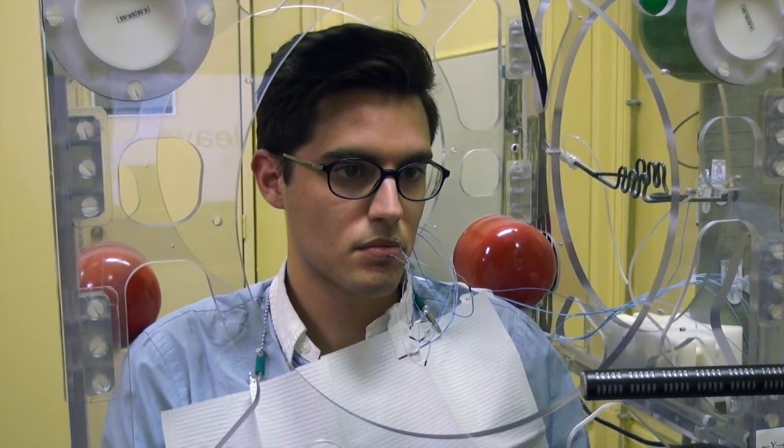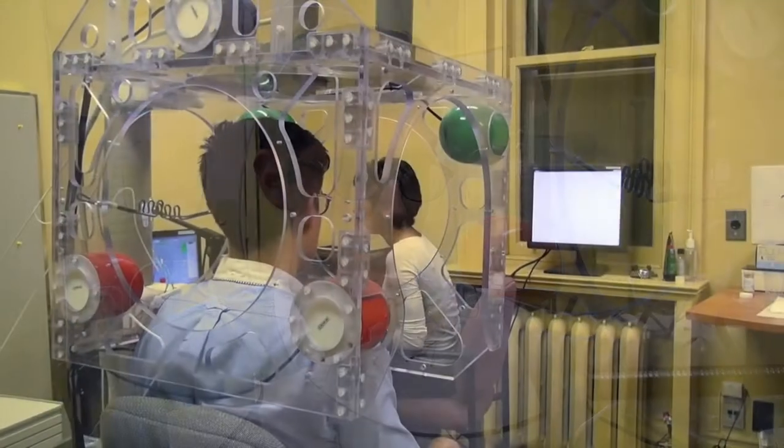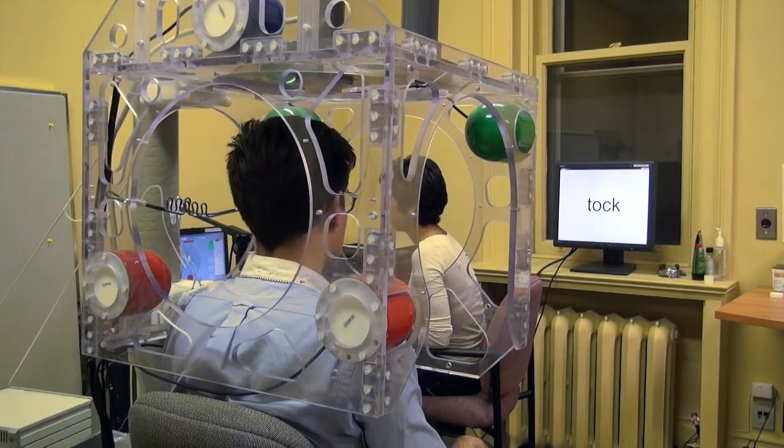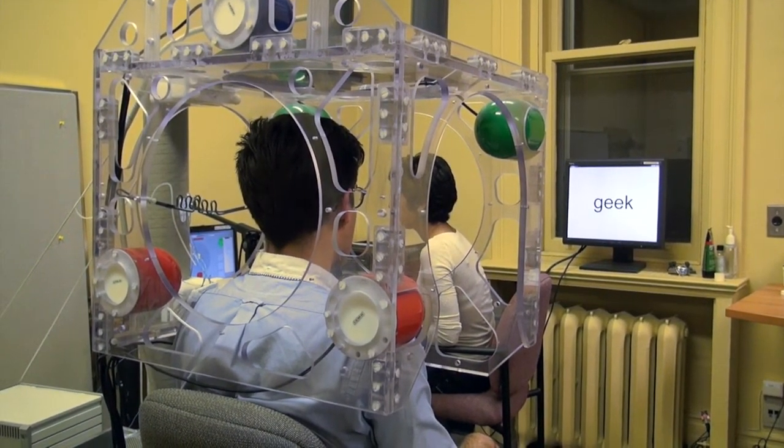The participant completes a speech production task during which the movements of the coils are recorded by the EMA and synchronized to the acoustic signal recorded by the microphone.